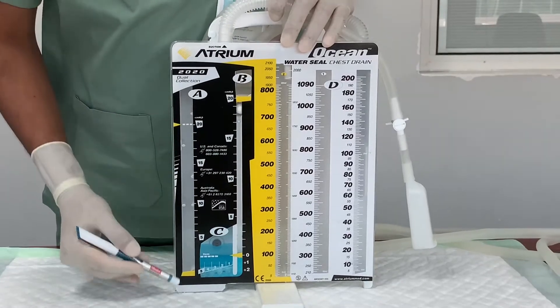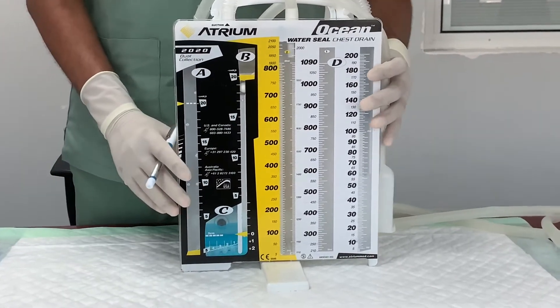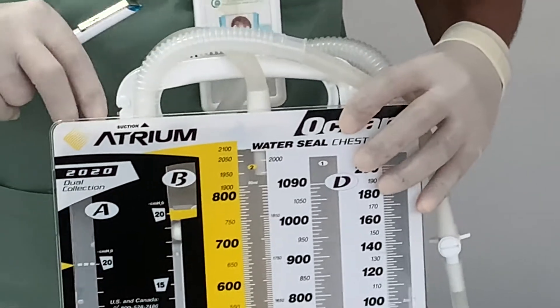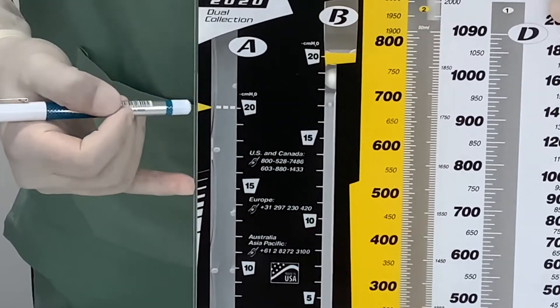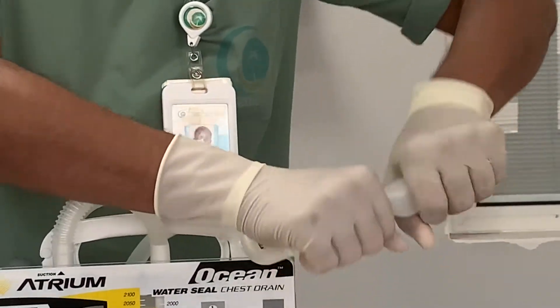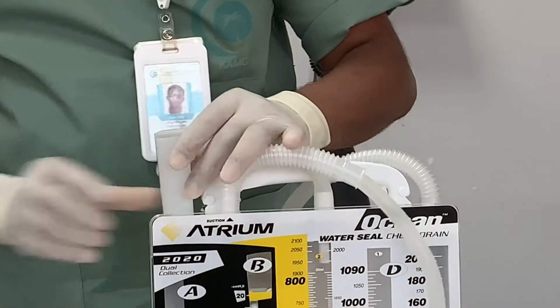The next chamber is the suction control chamber, which controls the suction applied. When setting up the chest drain unit, you will find a vent plug — remove it with your hand. Then pour water into the suction control chamber. The water level should be maintained at 20 centimeters, which is already marked on the chamber. To pour the water, use the same funnel used for the water seal chamber — just reposition it here and pour until you reach the 20-centimeter level.